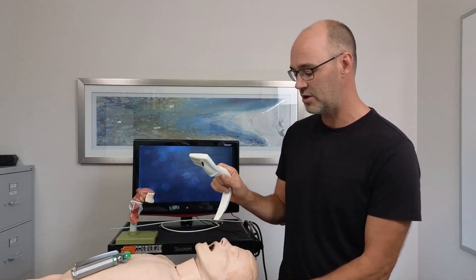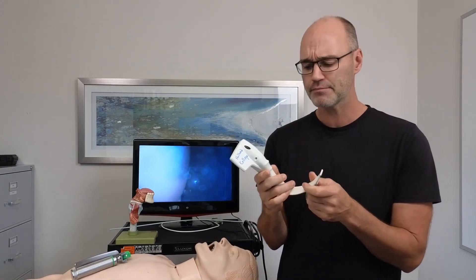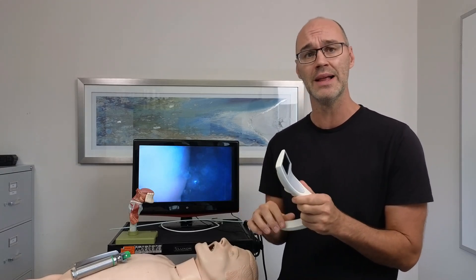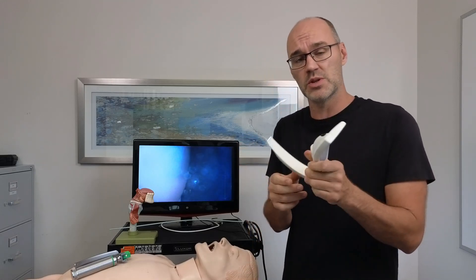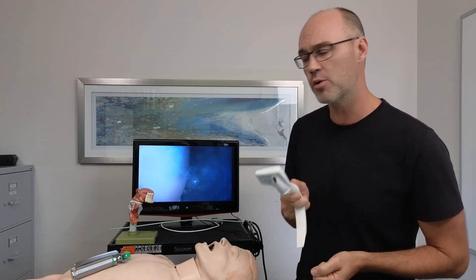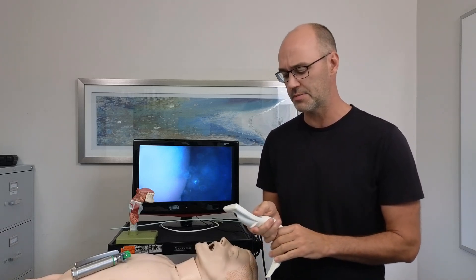This iView video laryngoscope that's actually disposable and has a very bright light, which is wonderful and a great reasonable view as well, is only in Canada $130 Canadian through ZOLL, which is just game-changing. So there's no reason you shouldn't have some form of a video laryngoscope on your ambulance or wherever you're practicing as a paramedic.